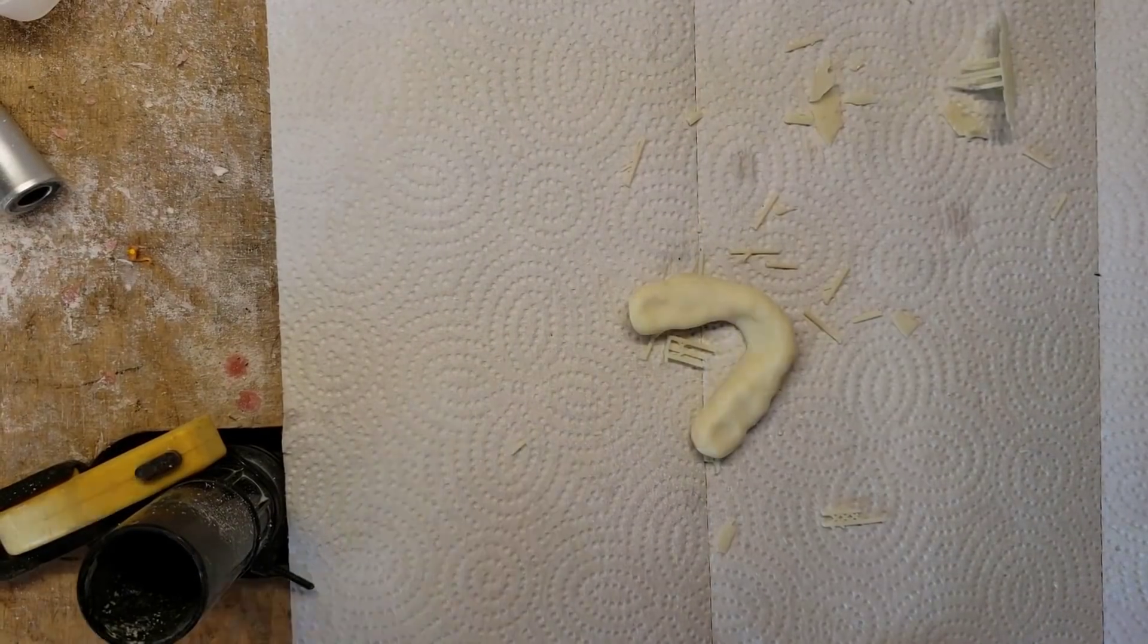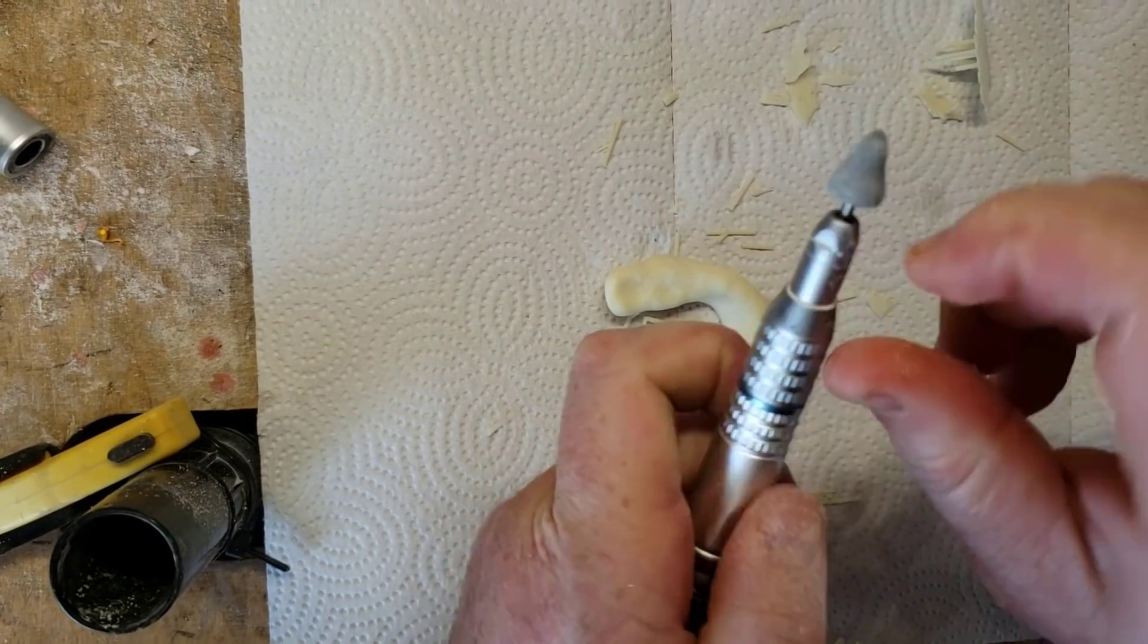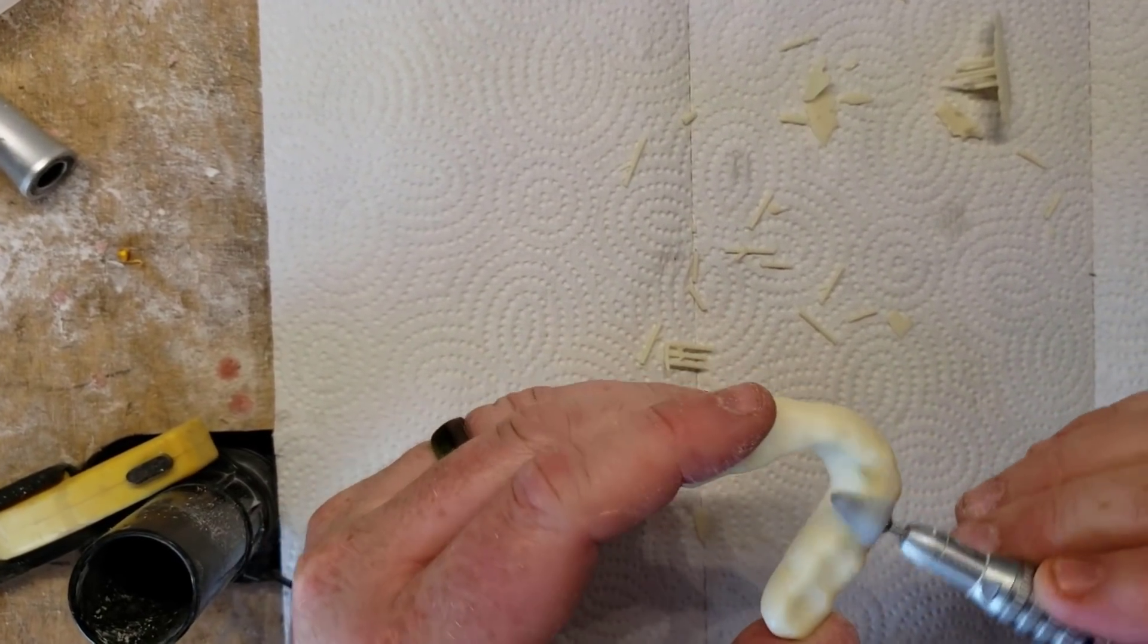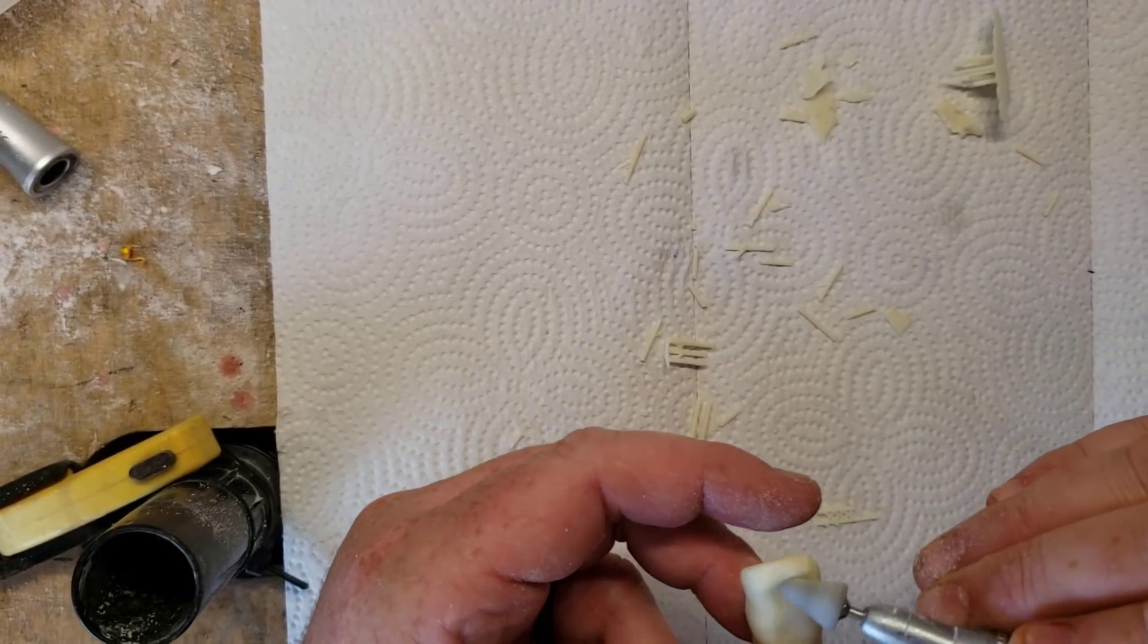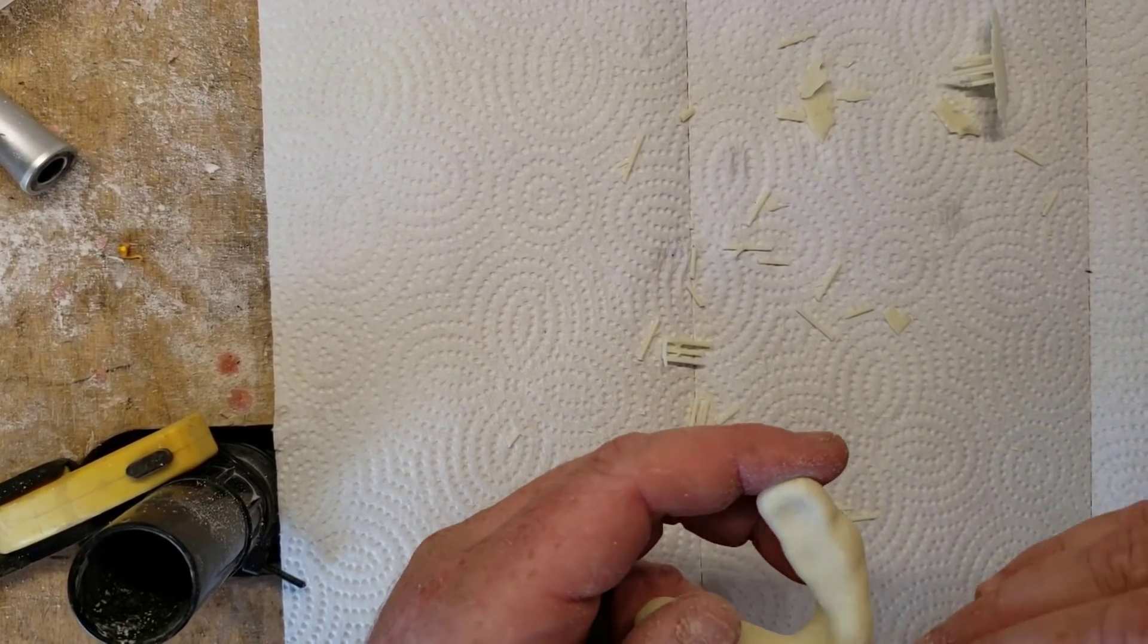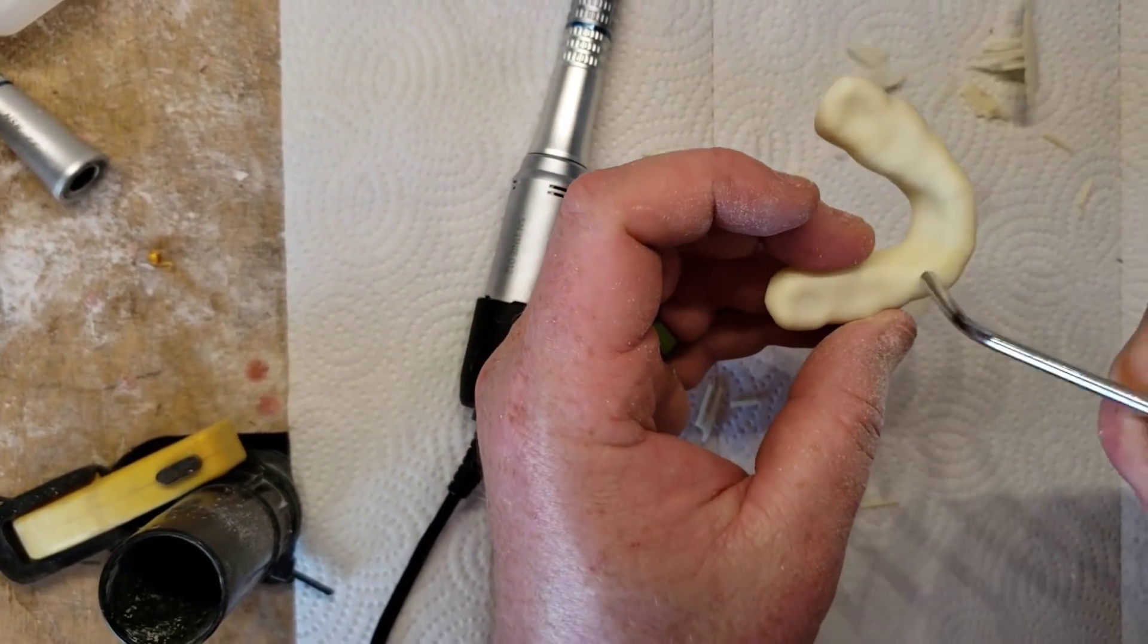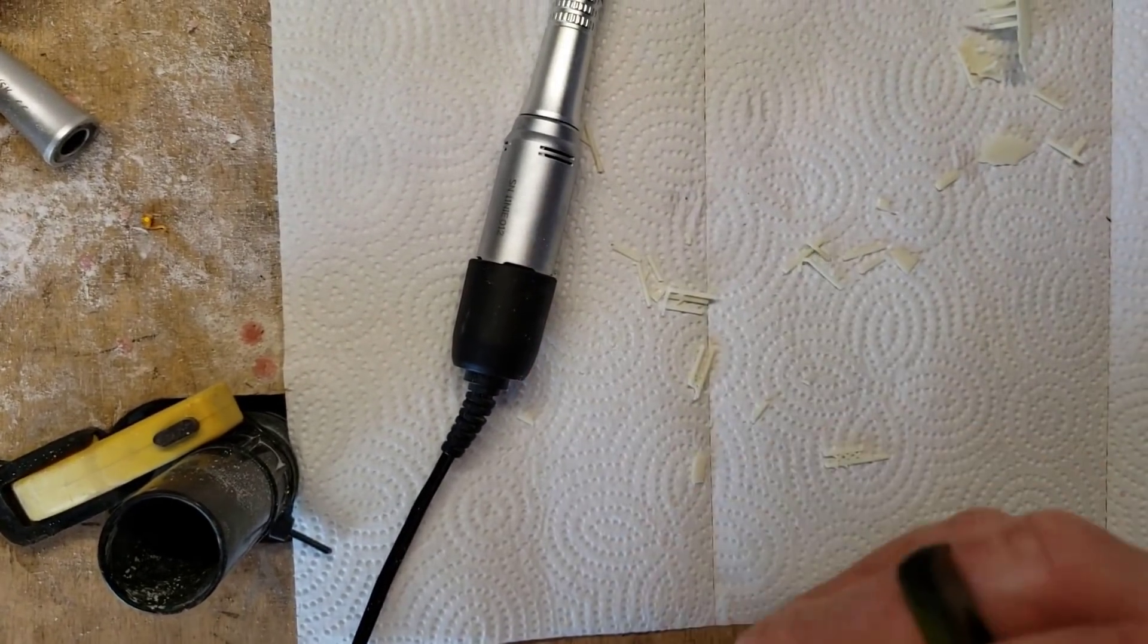I'm not trying to do occlusal adjustment or anything like that. I'm trying to do as little of that as possible because we dialed in the occlusion in the software. Now you could hit it with a polisher, make sure that's nice and smooth. All right, we're done. Dry this off, get the dust off of it, and now let's go try in this.